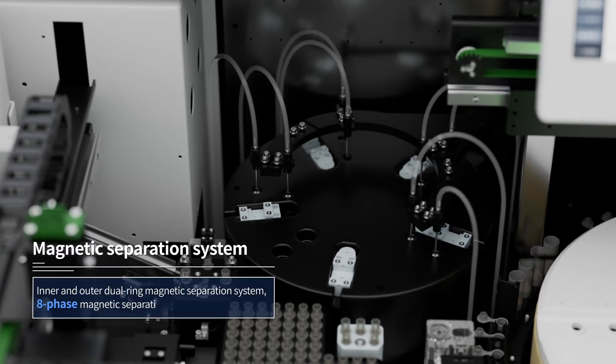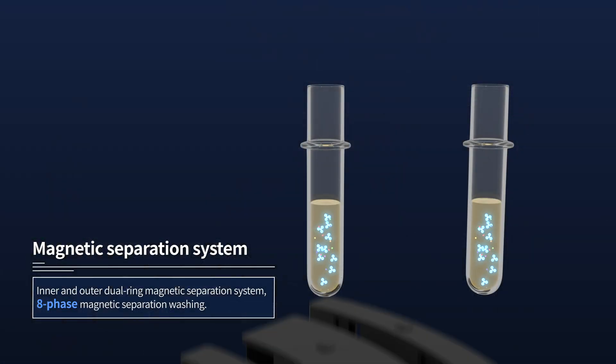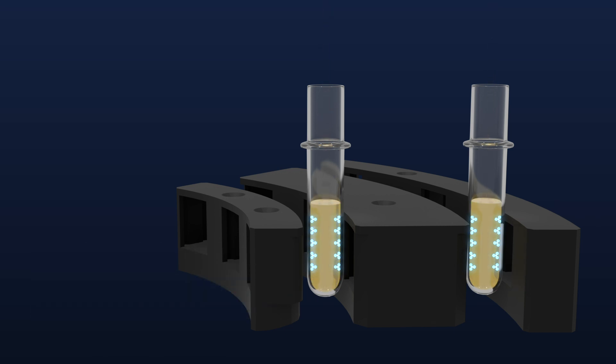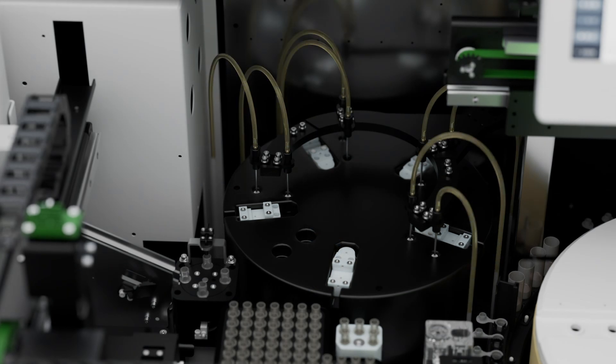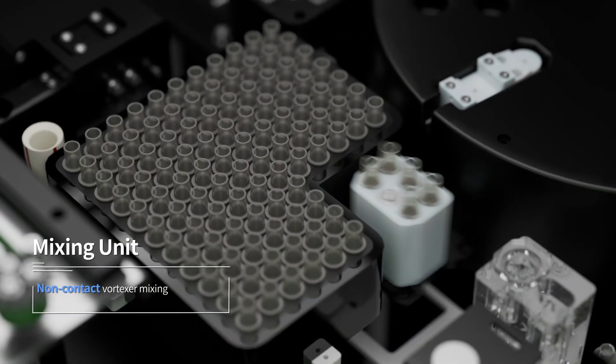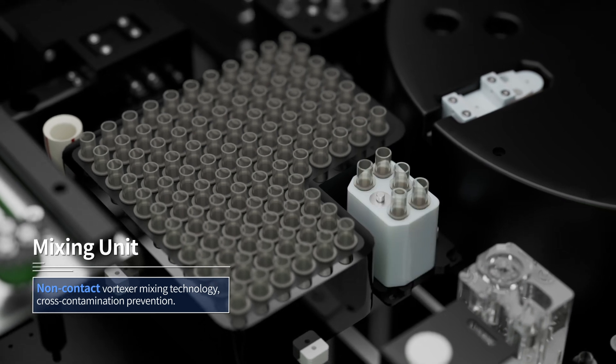The advanced magnetic separation systems ensure optimal washing effect. Non-contact vortexer mixing prevents cross-contamination.